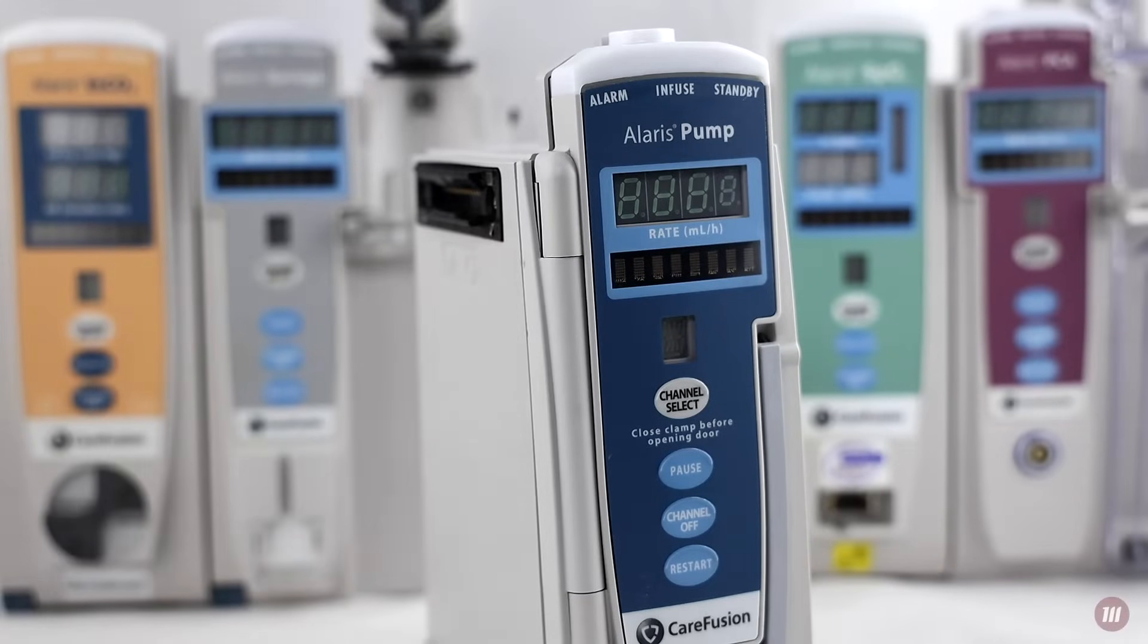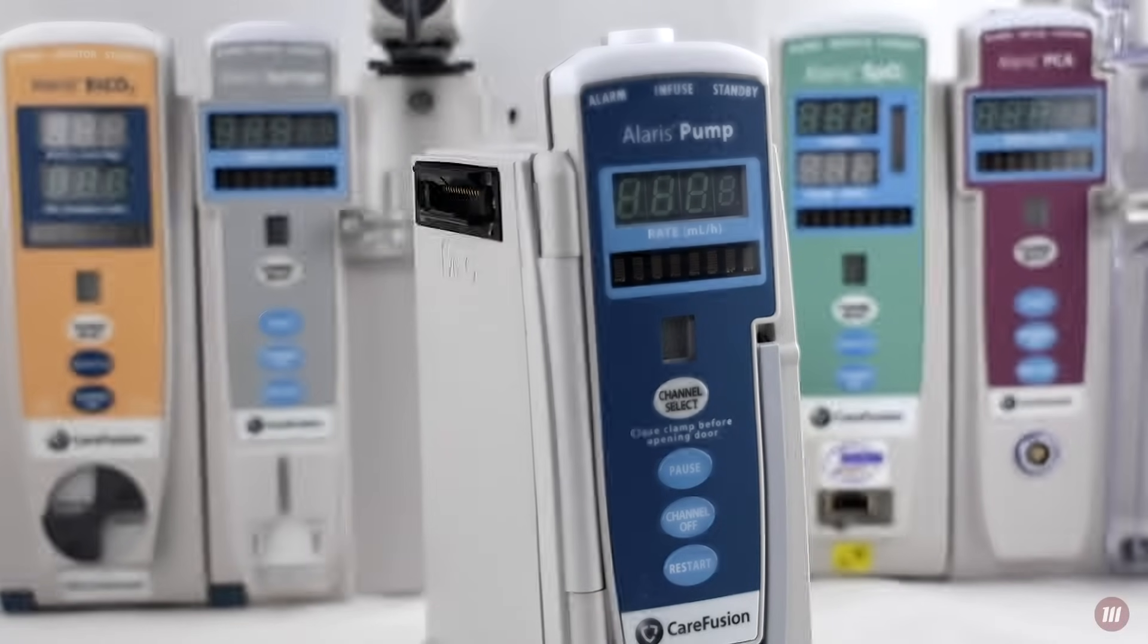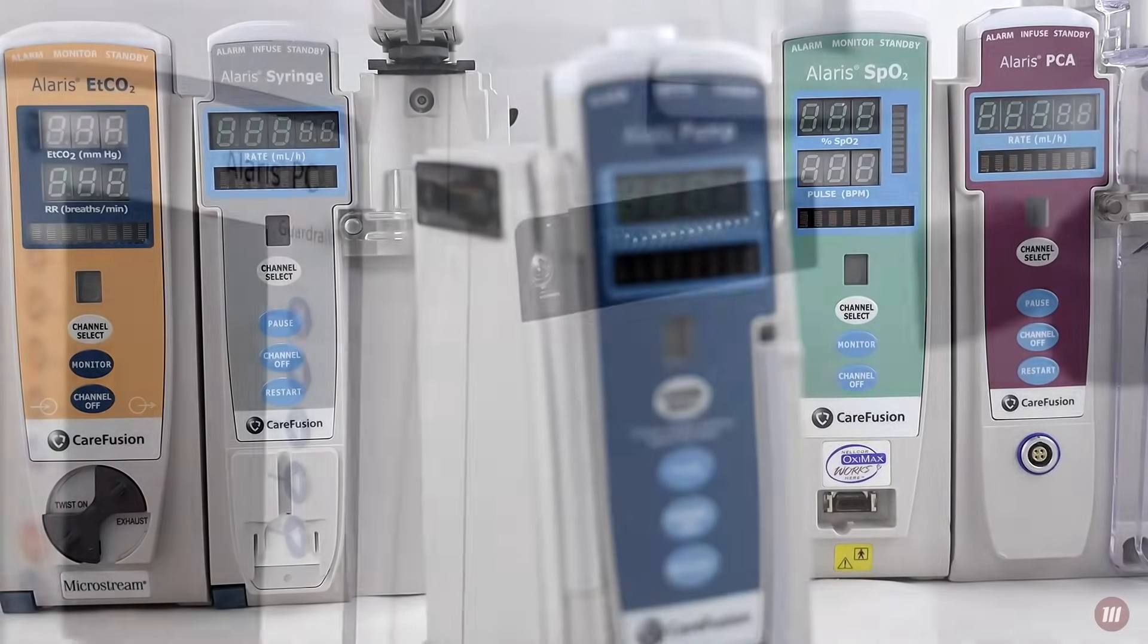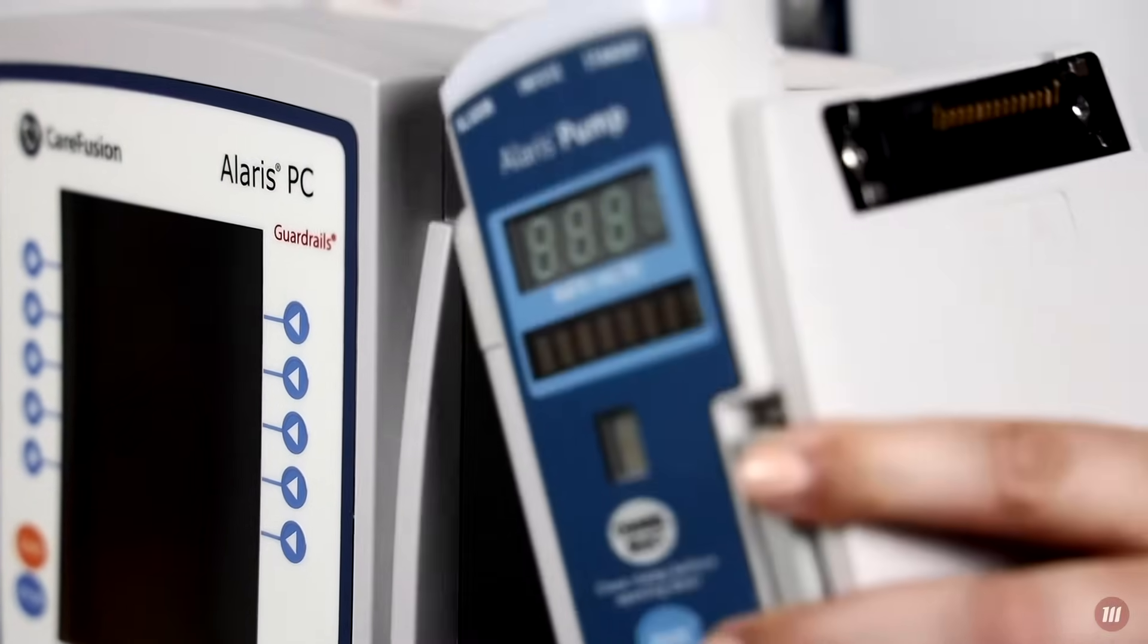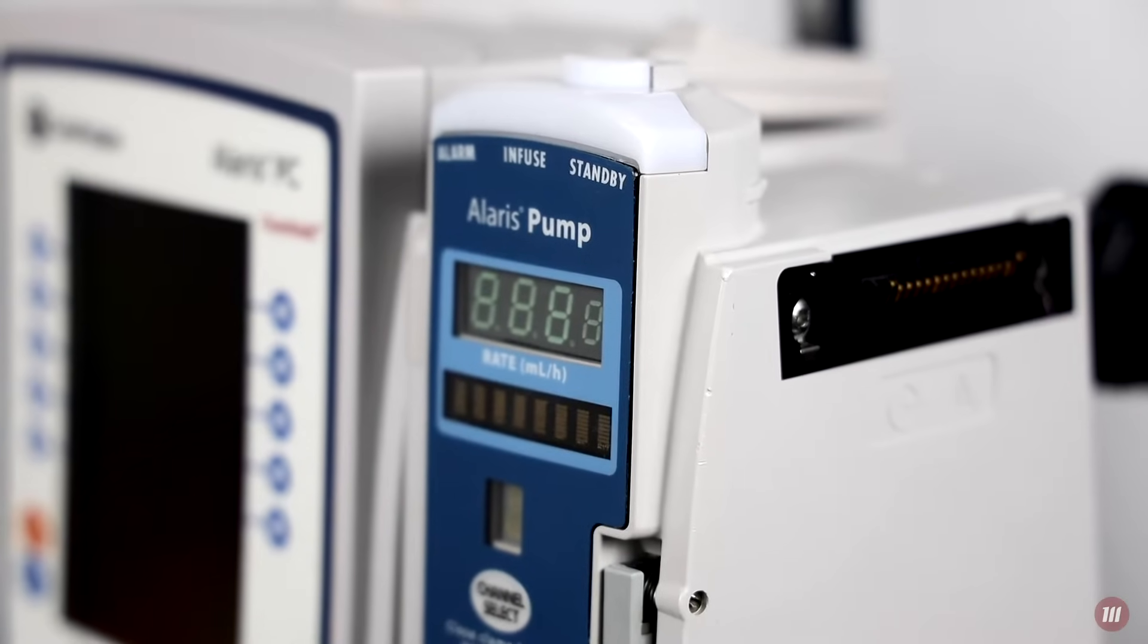The Alaris 8100 infusion pump is part of the popular Alaris system by BD. As a modular system, it connects directly to the Alaris 8015 point-of-care unit.